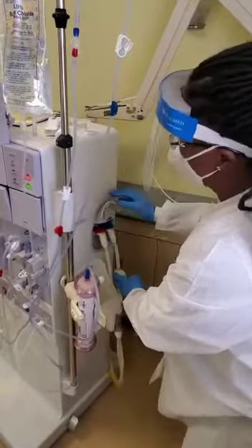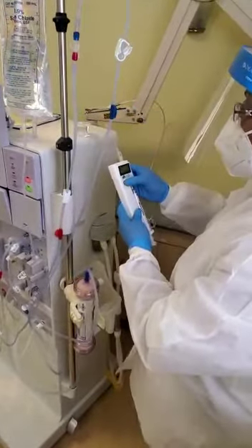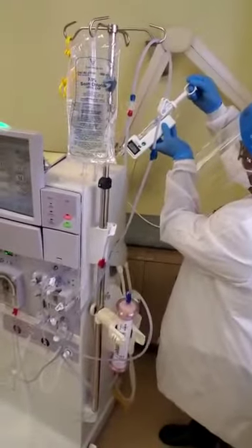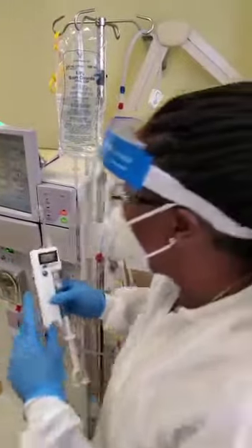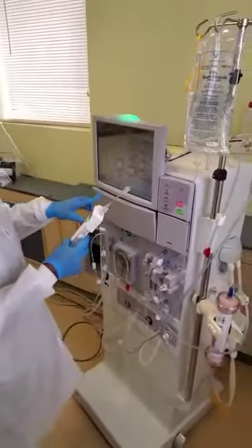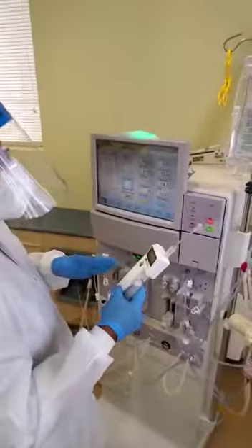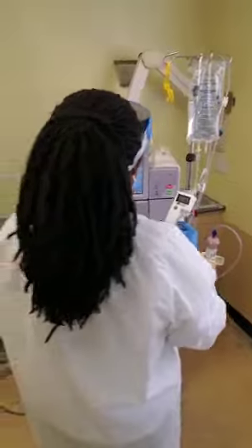I'm going to return this. I'm going to turn on my Phoenix meter by pressing this green button — the mode button. Then I'm going to pull up about 10 milliliters, and I'm going to compare it to what's on the machine. The conductivity on the machine and the Phoenix meter should not be more than plus or minus 0.2.